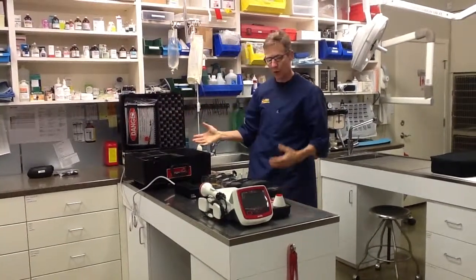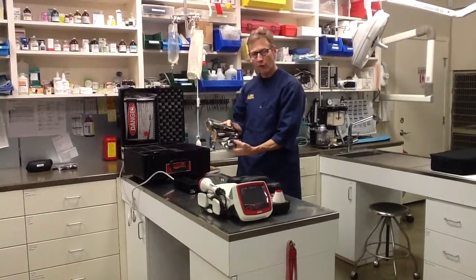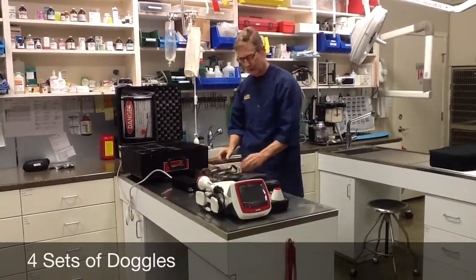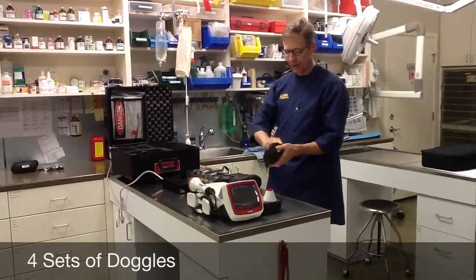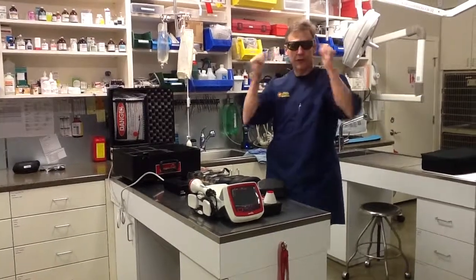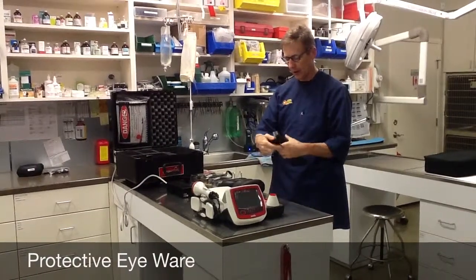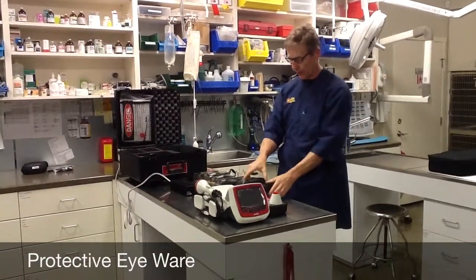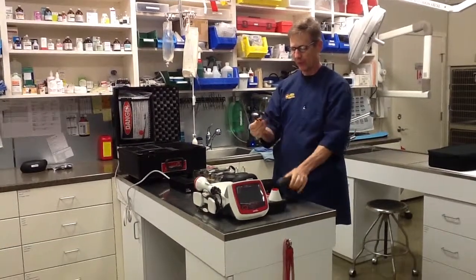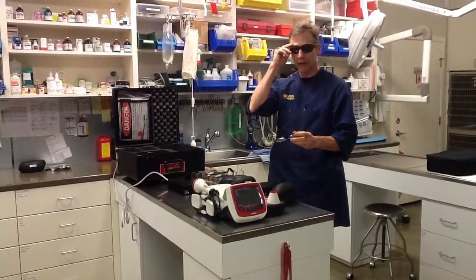You should have four sets of doggles from the very largest to the smallest to protect your patient's eyes, and four sets of glasses. You're going to have two of the over-the-glasses type — so if you have specs already like I do, this glass goes right over the top. And then there are two pairs of what I call the Bono-style glasses for people that aren't already wearing specs — much more stylish.